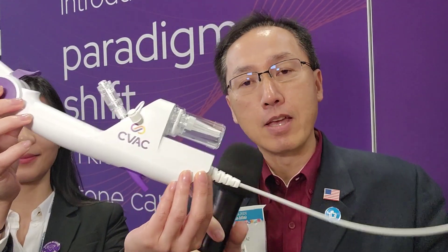It's an integrated ureteroscope with suction capability. Here's the device itself. The outer diameter of this ureteroscope is 11.9 French. You can either introduce the device directly via wire, or you can use an access sheath — obviously a 12-14 French access sheath.